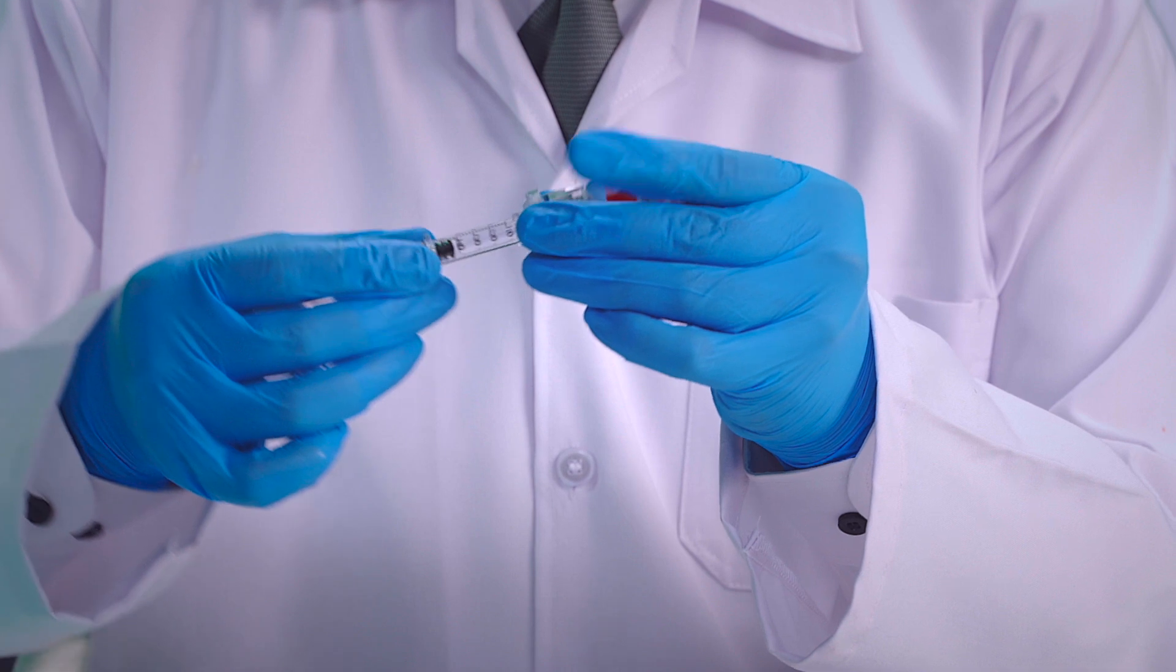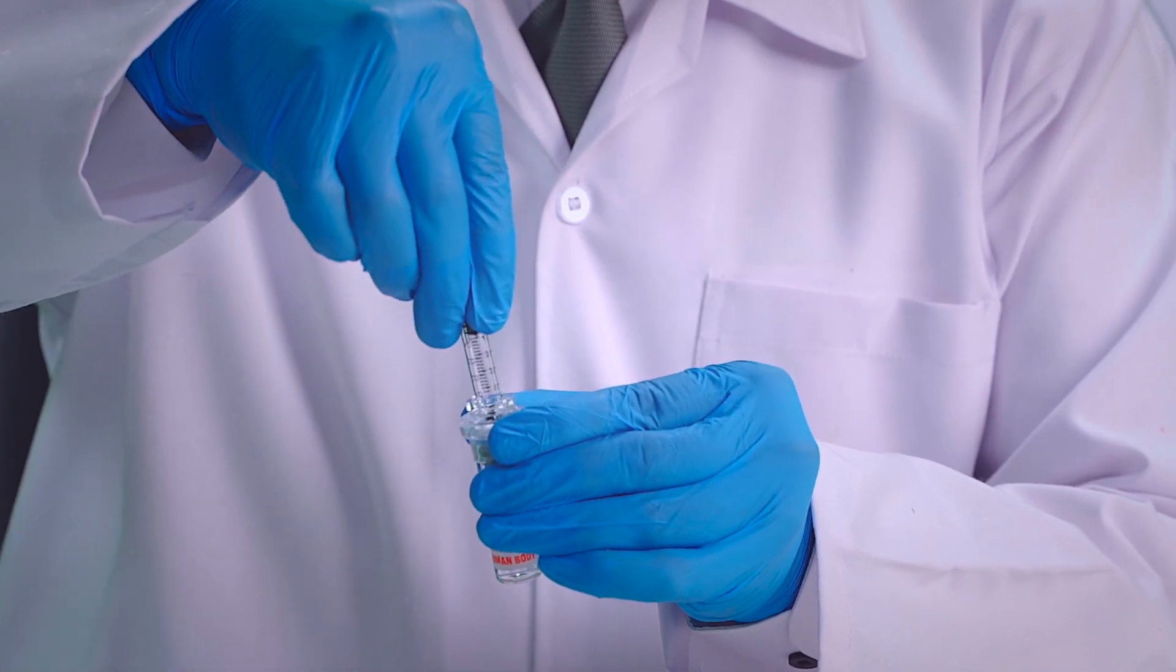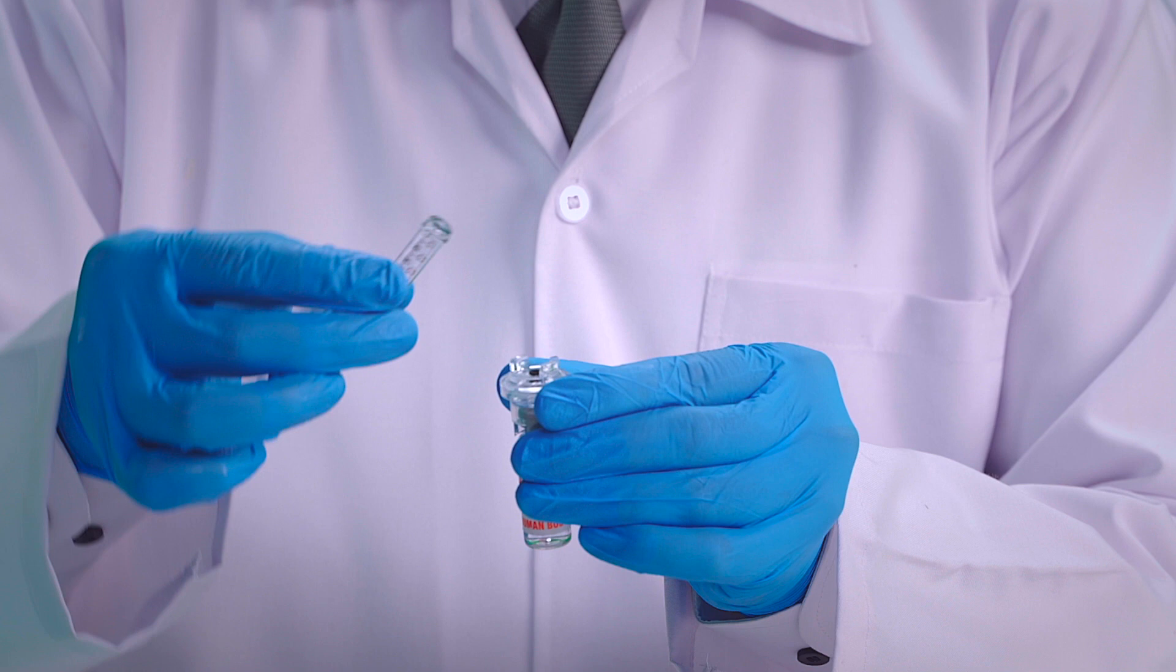Remove the filled cartridge by turning counter clockwise and follow all other procedures as mentioned earlier.